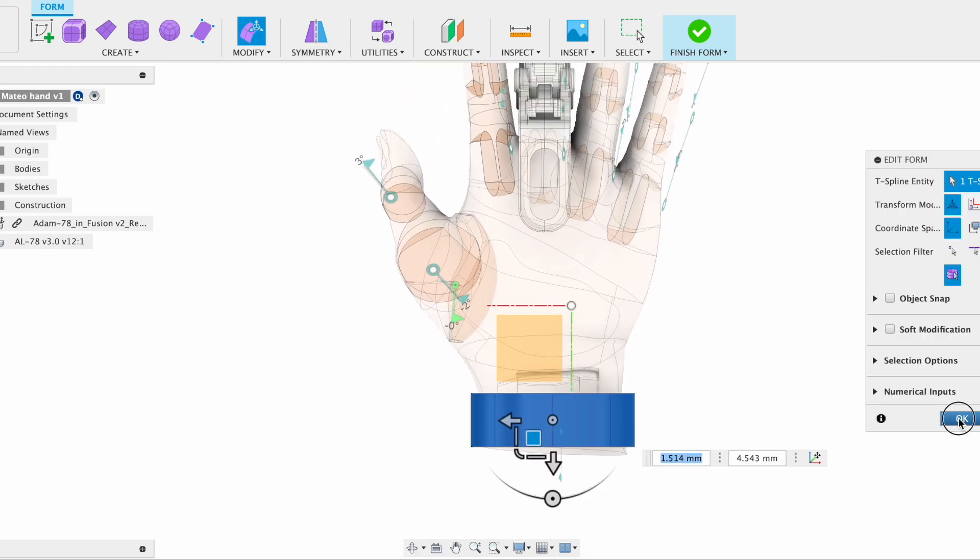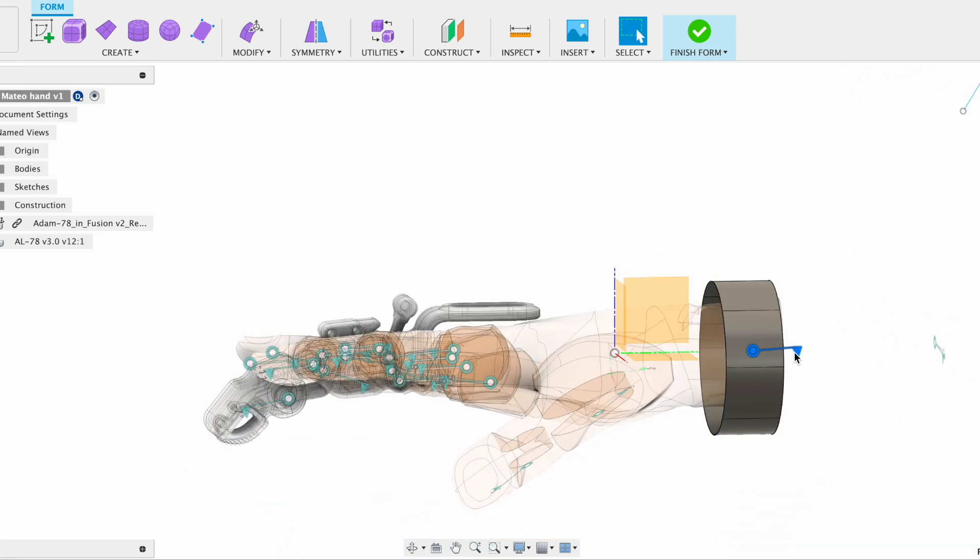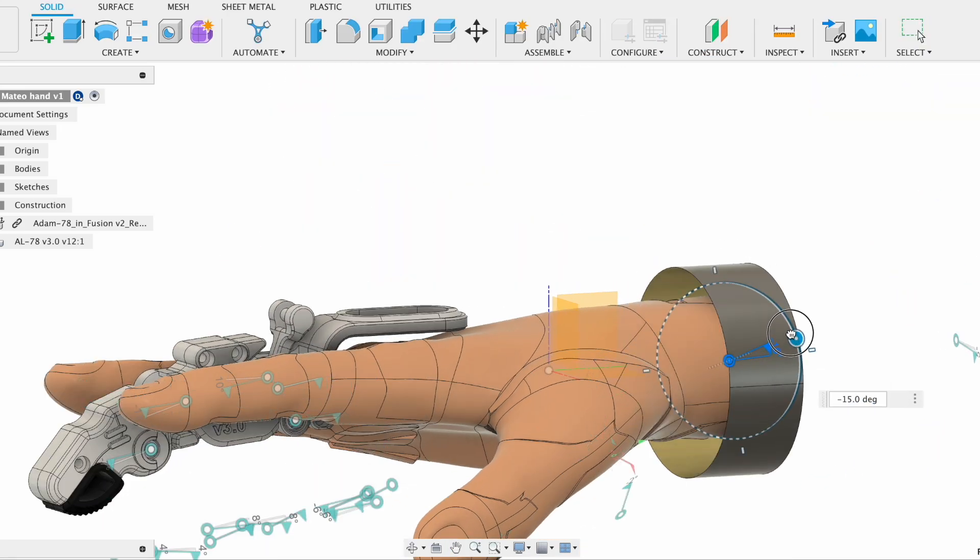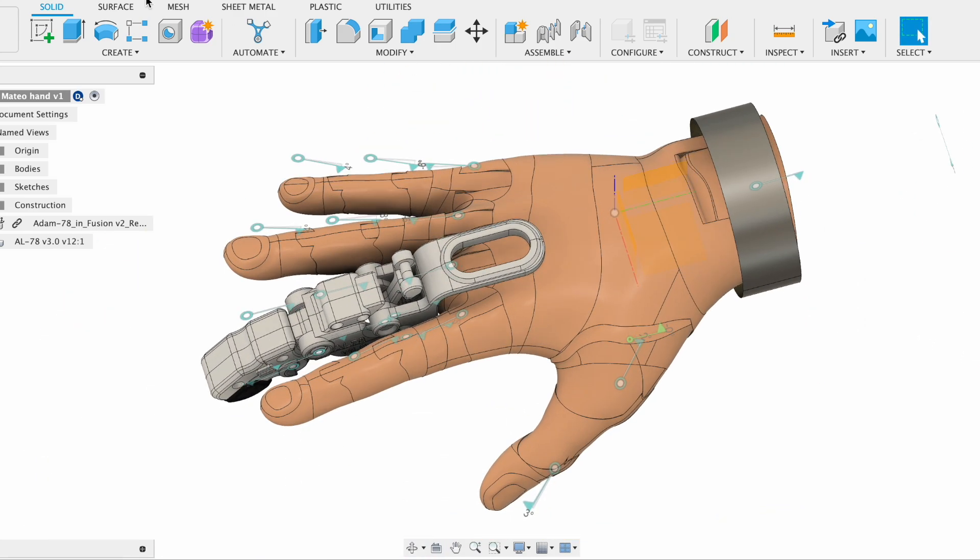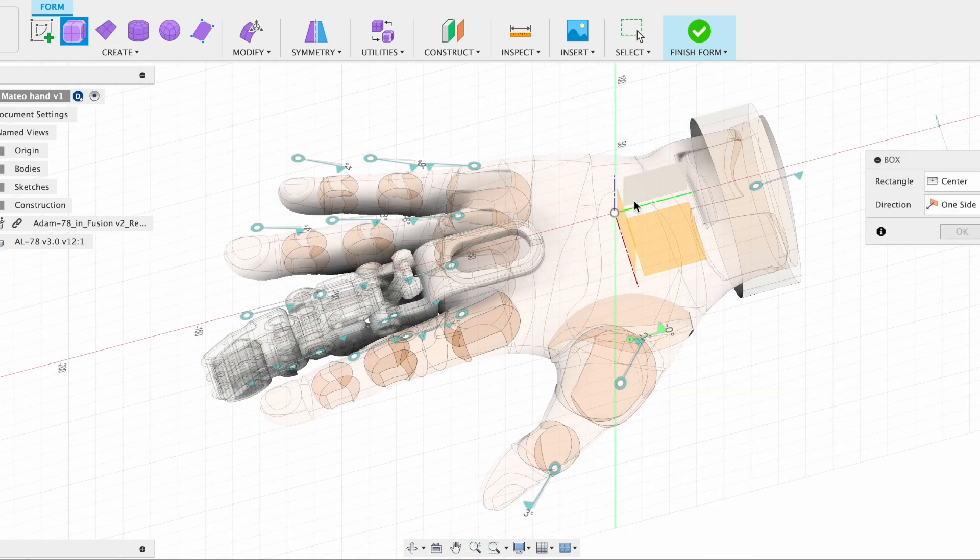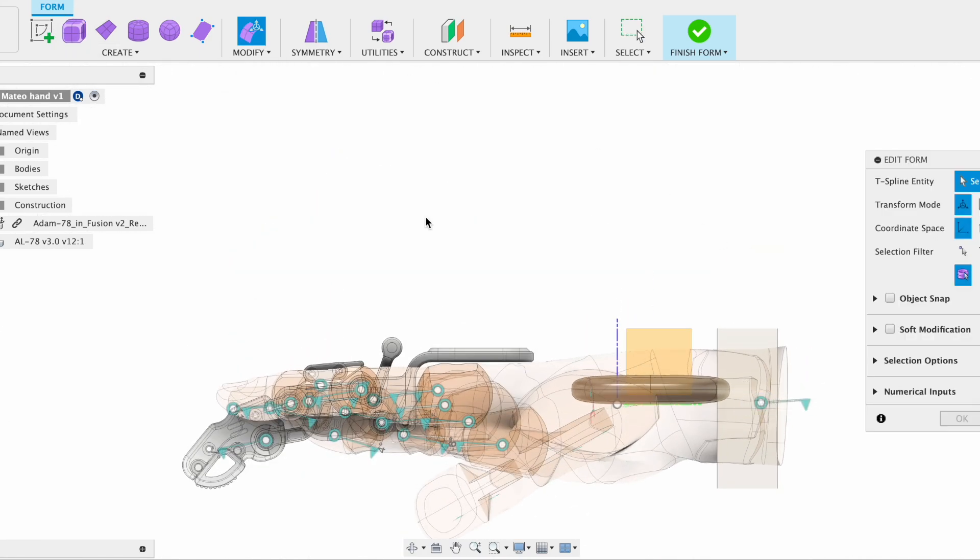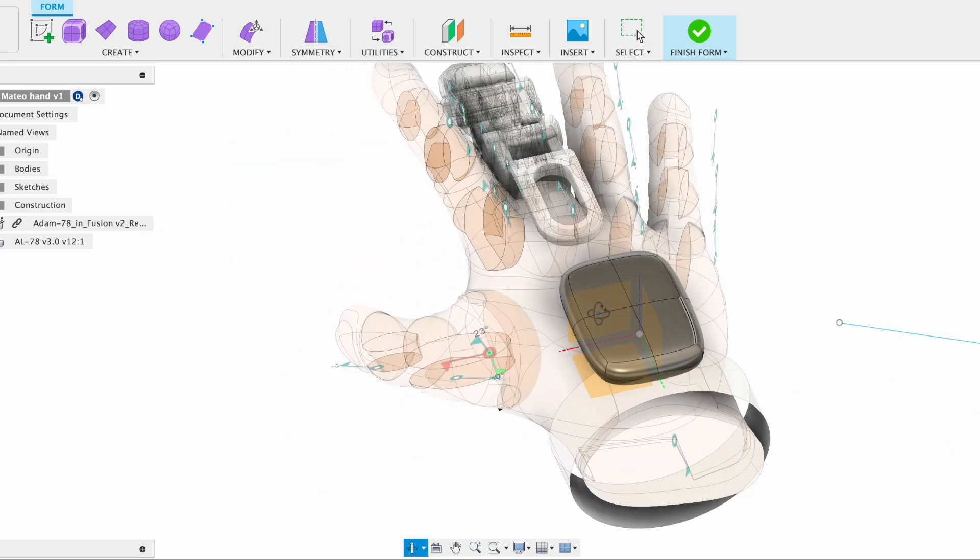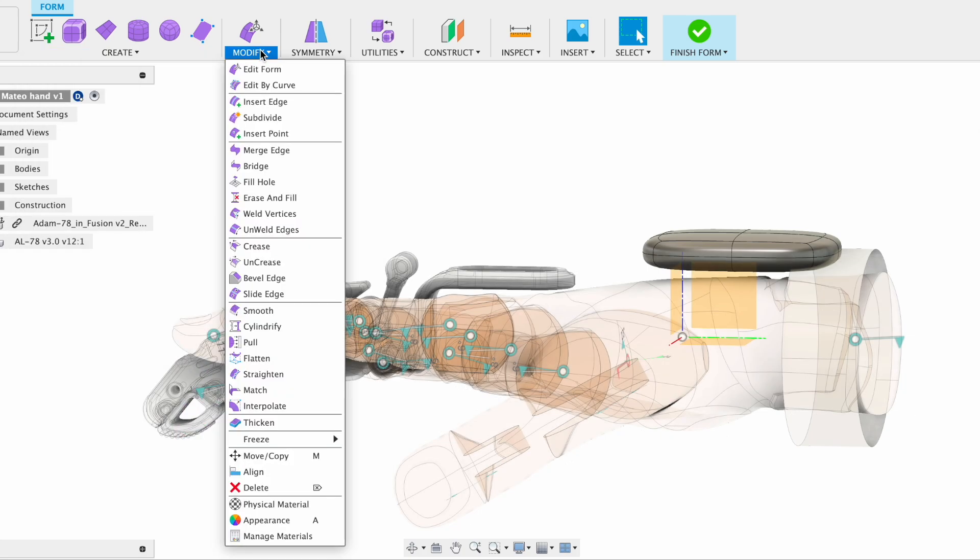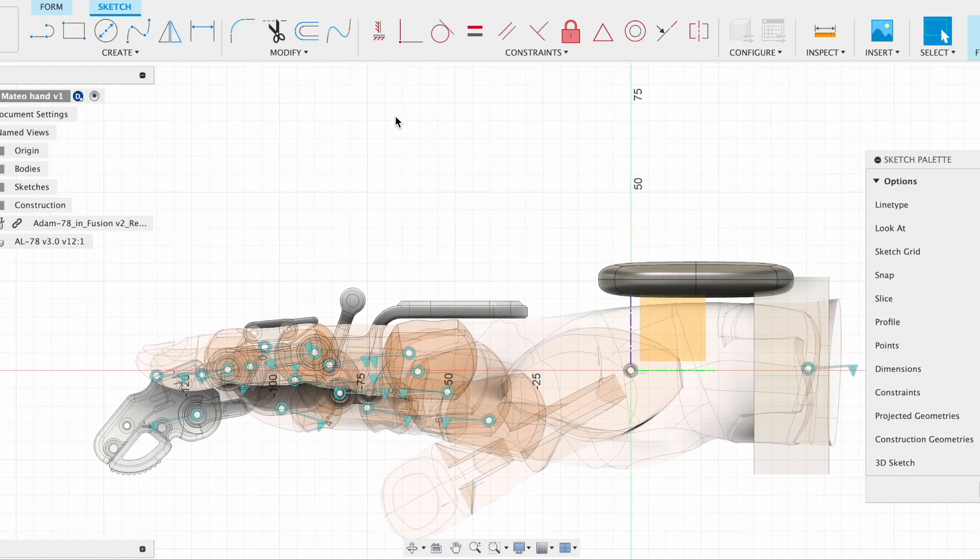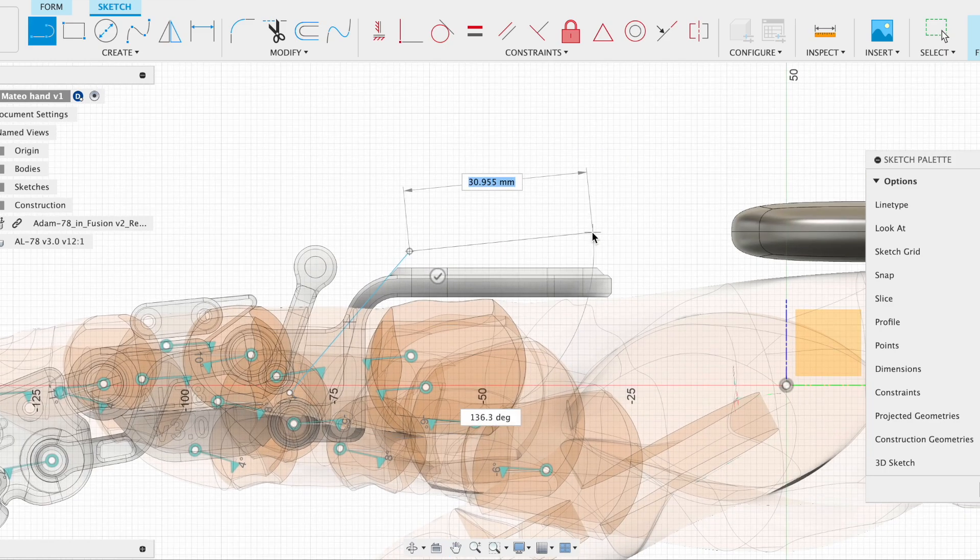After we position this, what we're also going to do is that even with the wrist attachment, we need a solid base that acts as protection and also attaches the string so that the movement of the string while being actuated doesn't hurt the user's skin on top. So this has two purposes: one is anchoring, and the other is to protect the upper skin of the hand.